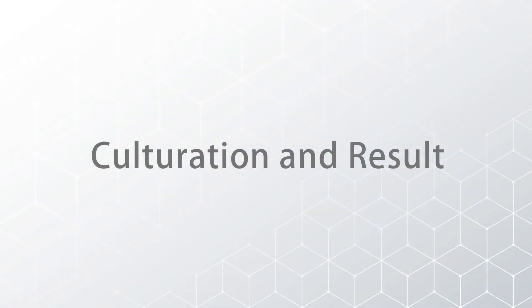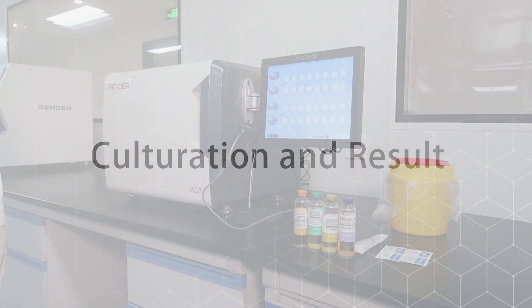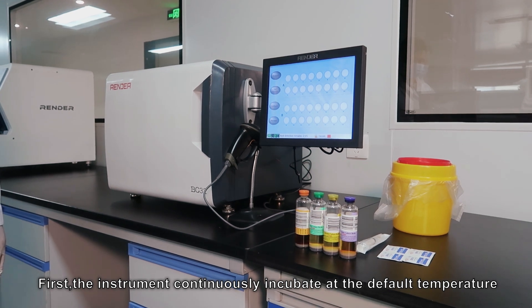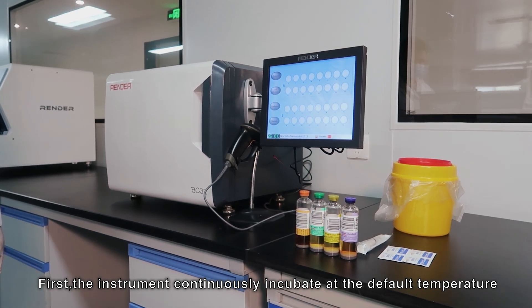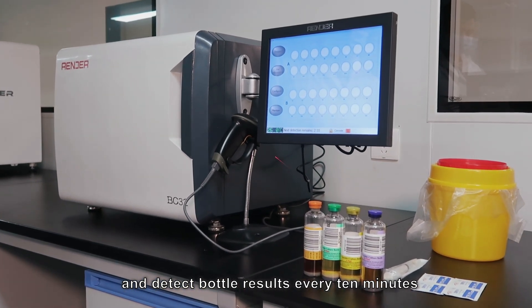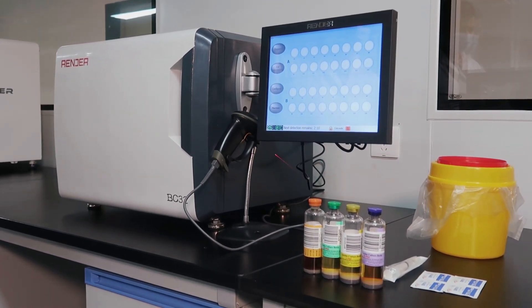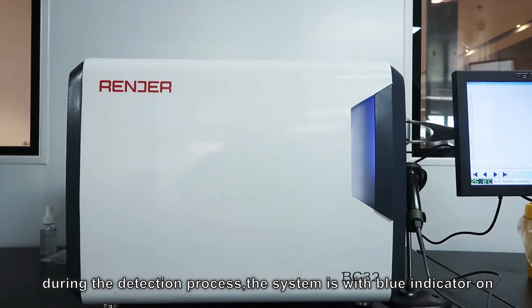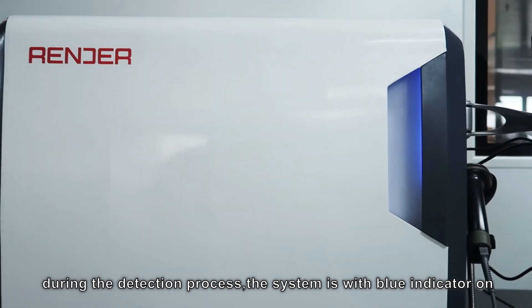Third, culturation and result. The instrument continuously incubates at the default temperature and detects bottle results every 10 minutes. During the detection process, the system indicator is blue.